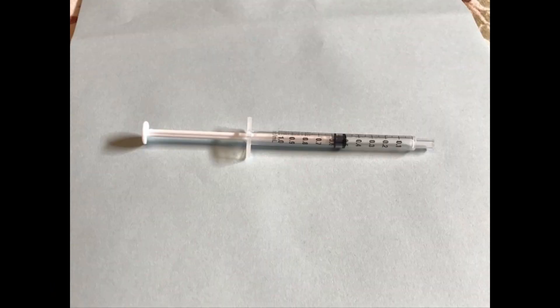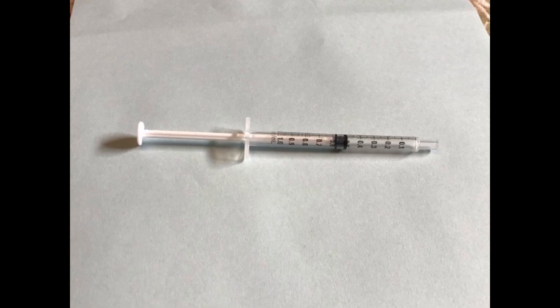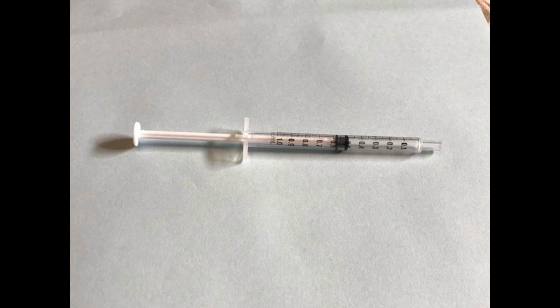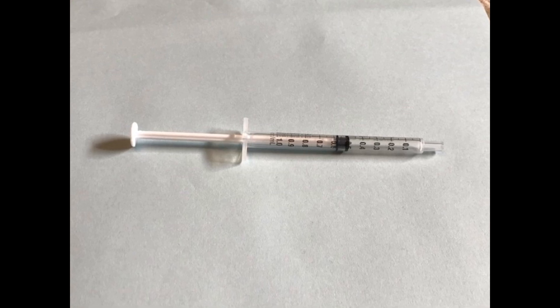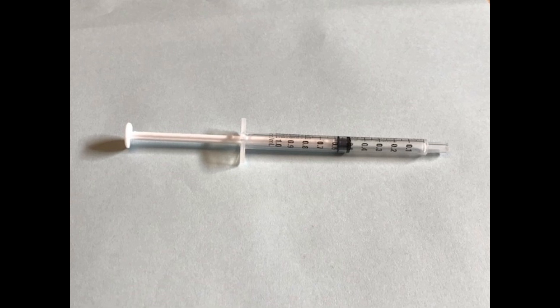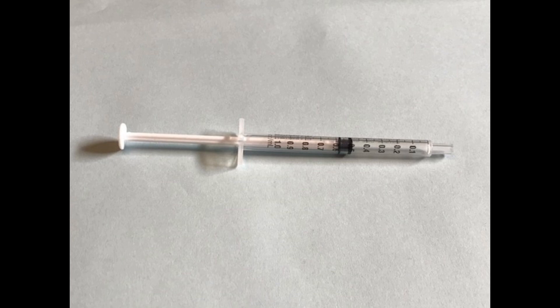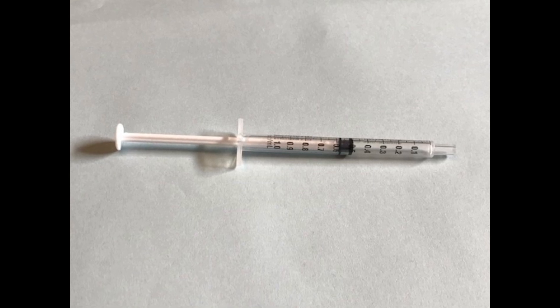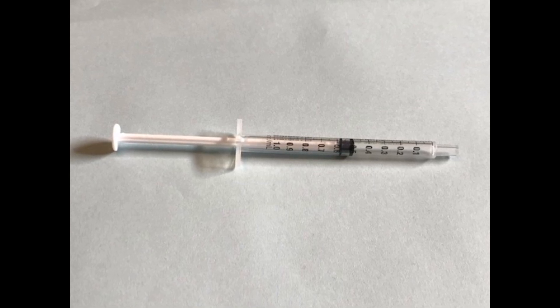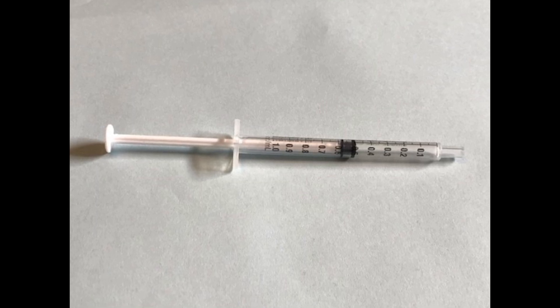The visible numbers on the barrel of the syringe are next to the longest line markings. On a one milliliter syringe, each number represents one tenth of a milliliter. The medium line between these points denotes 0.05 milliliters, and the smallest markings denote 0.01 milliliters. The following series of photos will walk you through the markings of a one CC syringe.